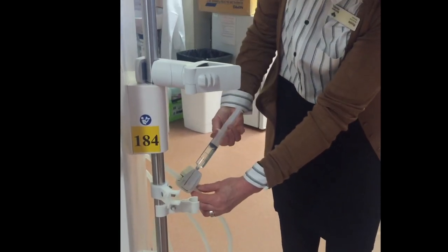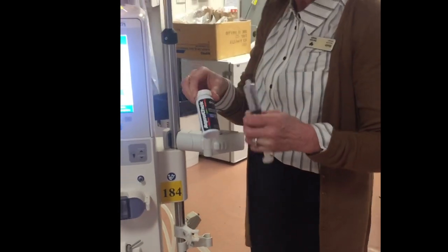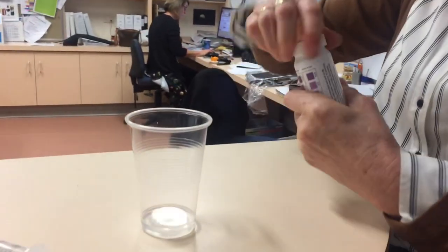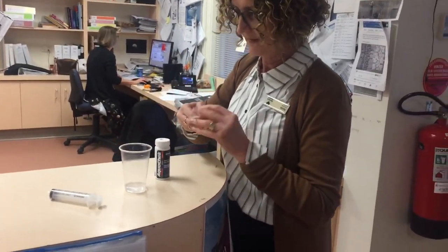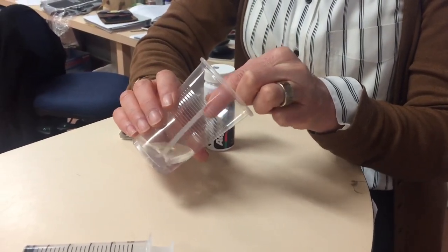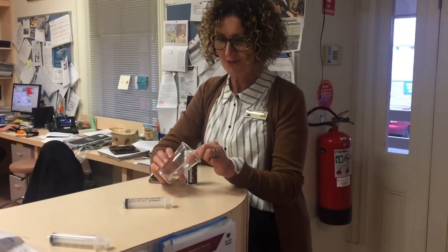I've got my aqua check to test for residual chlorine. I'm going to put the fluid I collected into my cup, then take the aqua check stick out to test for residual chlorine. Now I'm going to swish it gently in this fluid for 30 seconds — just like you do every time before you dialyze when checking for chlorine.